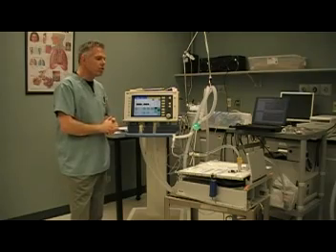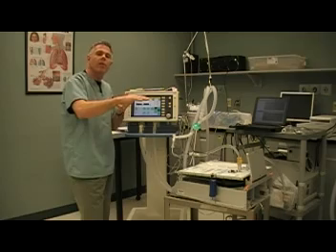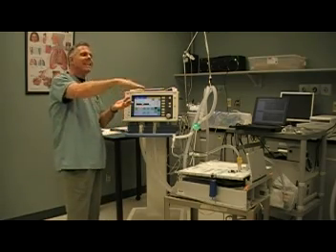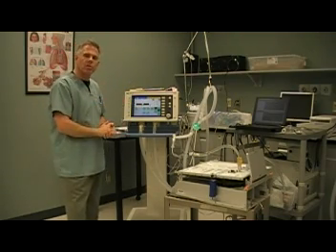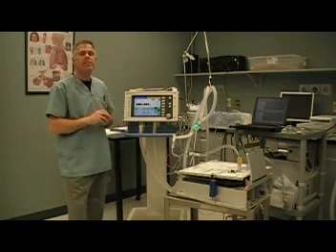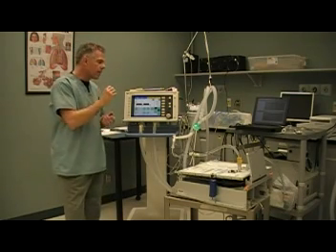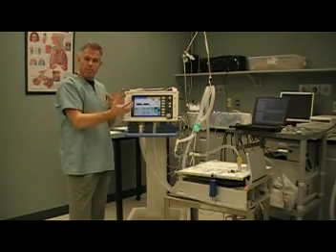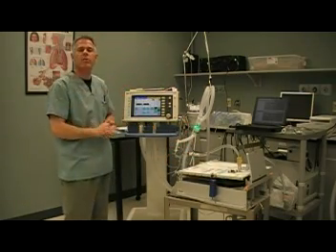So it looks a little unusual. The patient is allowed to breathe at any time during the inspiratory or the expiratory phase, but is given no additional assistance by the ventilator. The patient's inspiratory and expiratory efforts can occur regardless of what the ventilator is doing, so this mode is often unsynchronized with the patient. This can have consequences — occasionally you'll need to sedate your patients for them to adapt to this mode of ventilation. Sometimes they become comfortable with it and will just breathe as they see fit at any time during the inspiratory or expiratory phase.